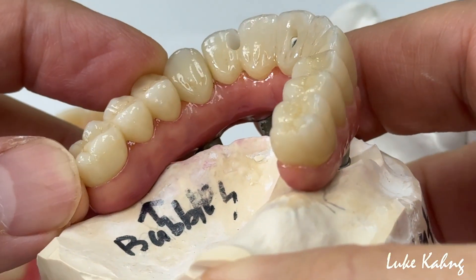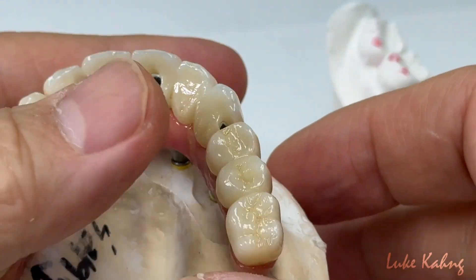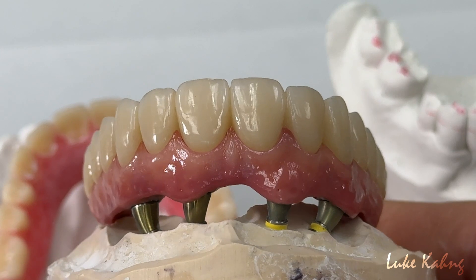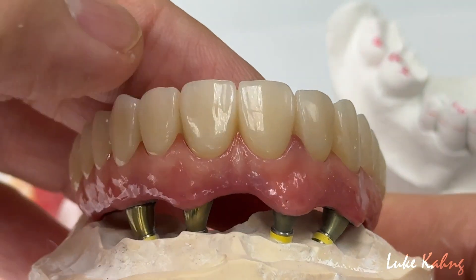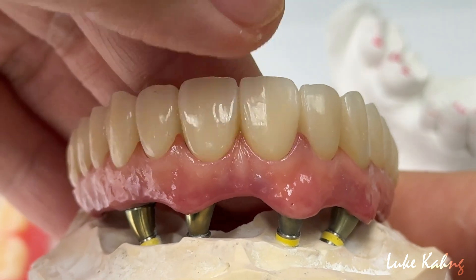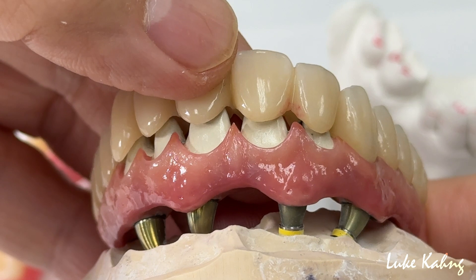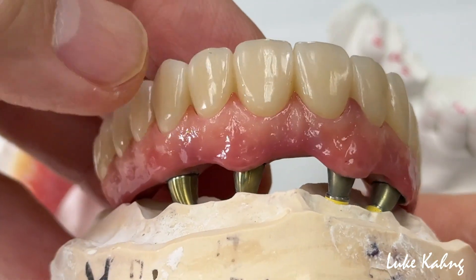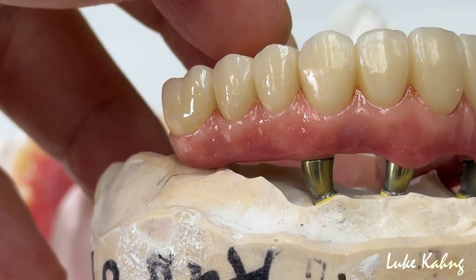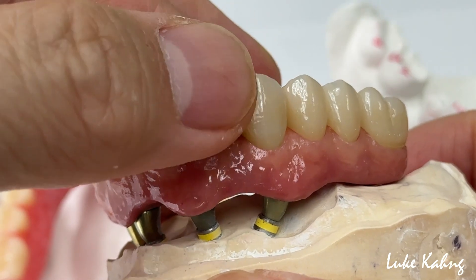And here's a long-span pontic. It's unbelievable — we finished it. And then we make these final restorations like this: a lifelike restoration as much as possible, using sort of a pink color here. I'm making great aesthetics. It's covered completely — no composite involved.